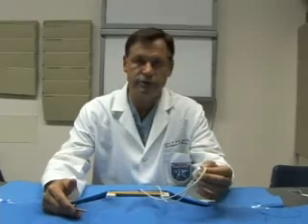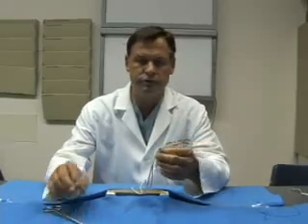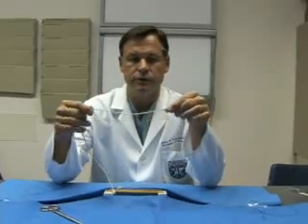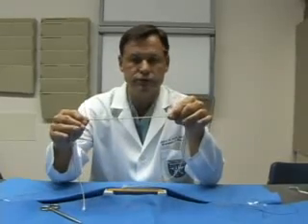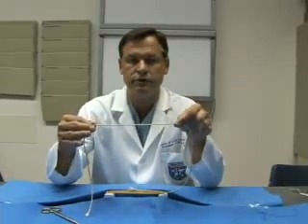What you don't want to do is develop bad habits by imperfect practice. If you practice imperfectly over and over again and ingrain bad habits, it'll be very difficult to break those habits. So especially early on, carefully check every knot. Use large enough suture materials so that you can actually see the result of your knot. Bite the bullet, swallow your pride, use large materials to practice your knots initially until you know that you're getting the right motion each and every time. Then you can move to smaller and smaller suture materials.